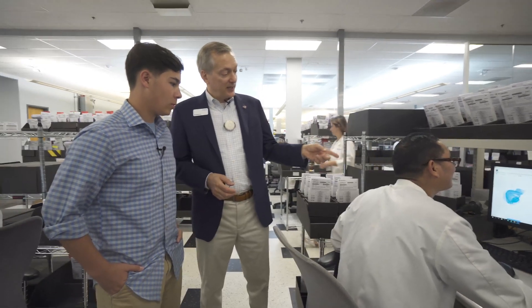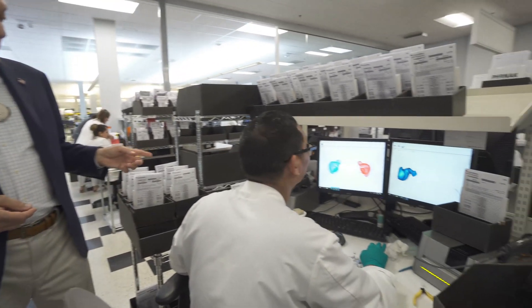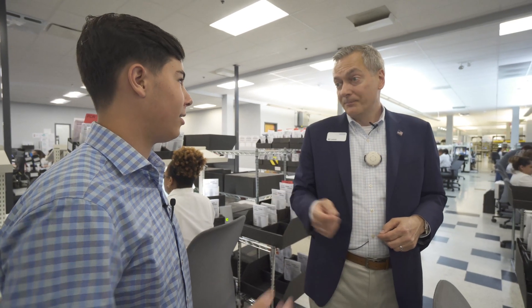At a scanning station, we're taking those ear impressions and putting them into a digital scanner — those two gray boxes are digital scanners. They translate the impression into data points and build what we call a point cloud on the screens. That basically removes the need for the physical mold. Once we've scanned it, we don't need the physical mold anymore — we've essentially created the blueprint.